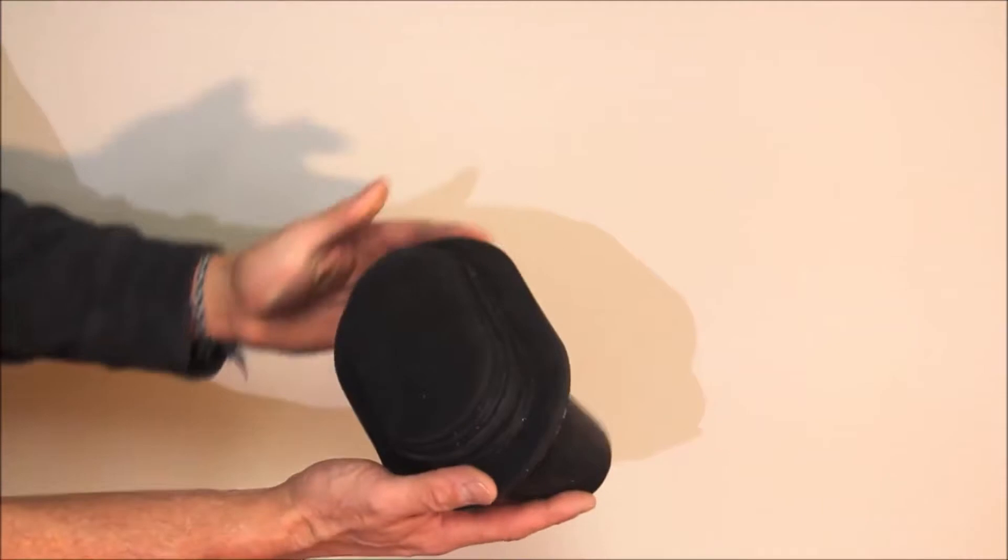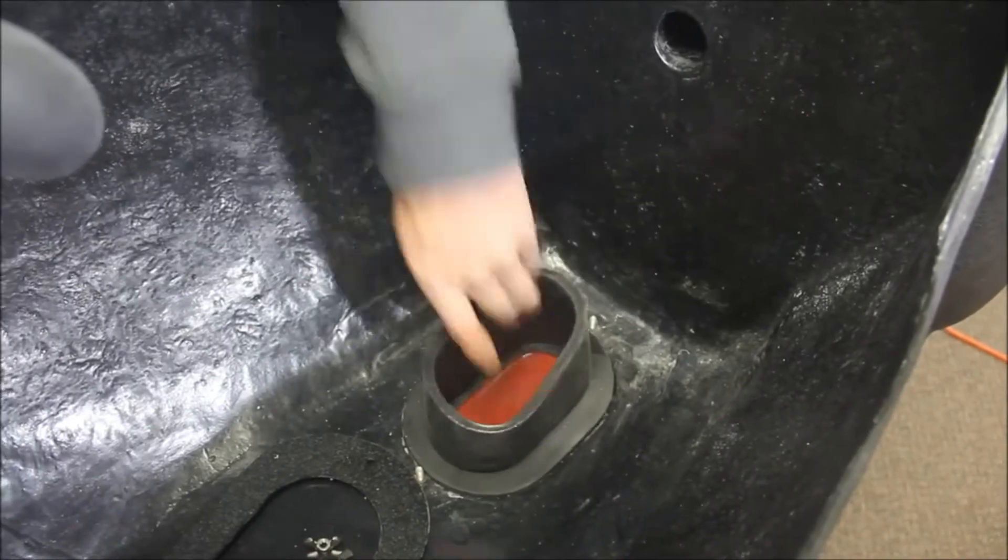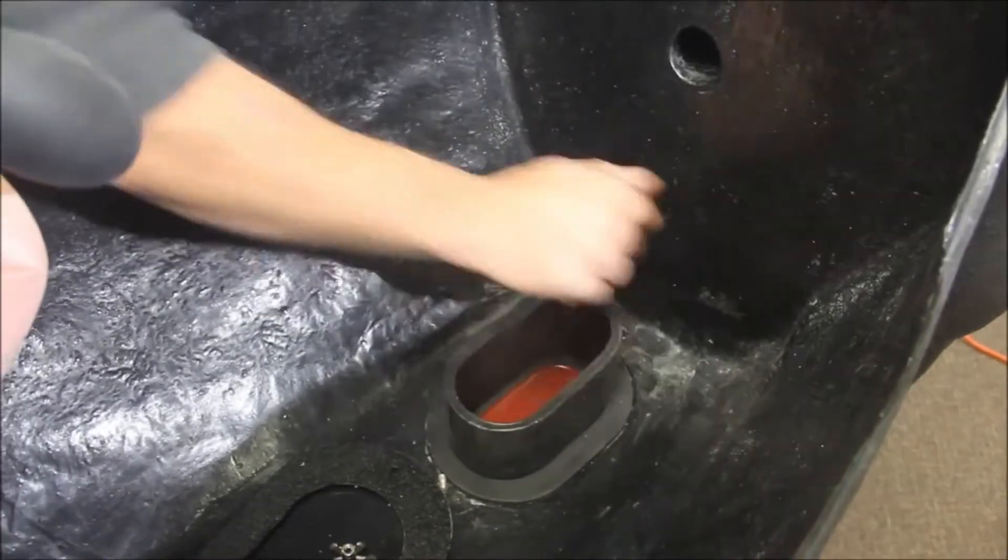Here is the abdominocentesis or belly tap plug, which is a replaceable part. It has a fluid reservoir for injections and features a palpable linea.